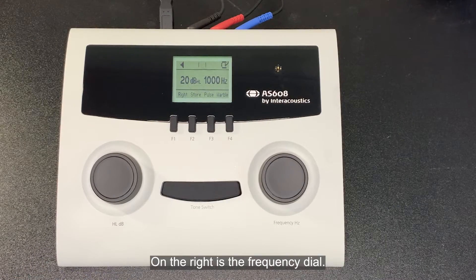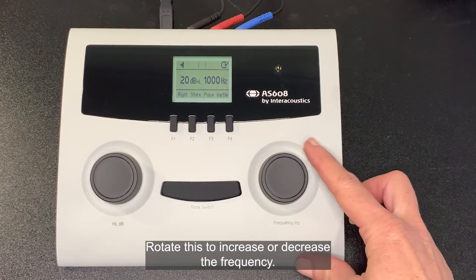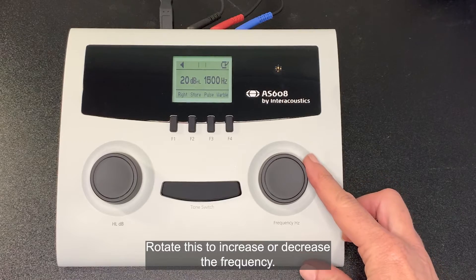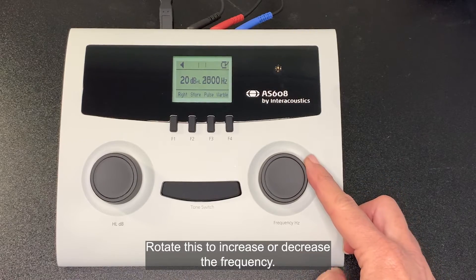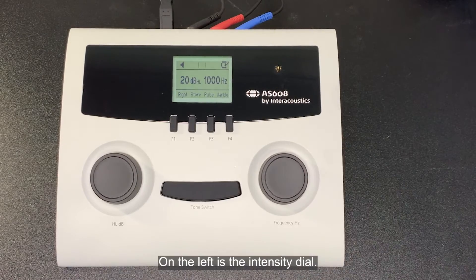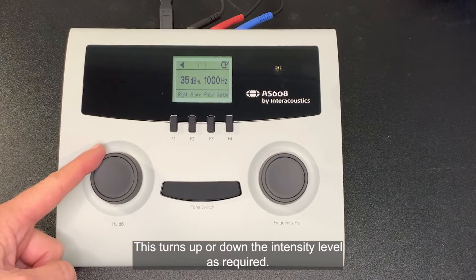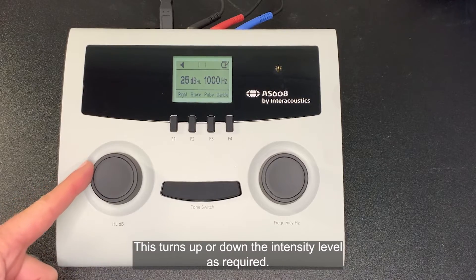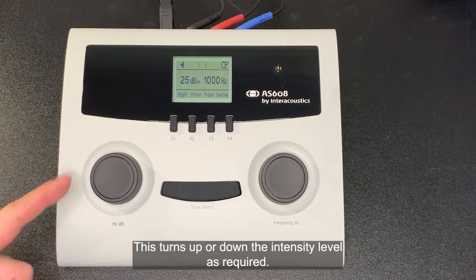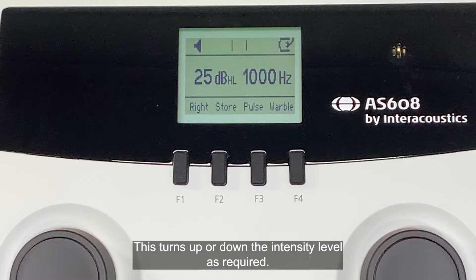On the right is the frequency dial. Rotate this to increase or decrease the frequency. On the left is the intensity dial. This turns up or down the intensity level as required.